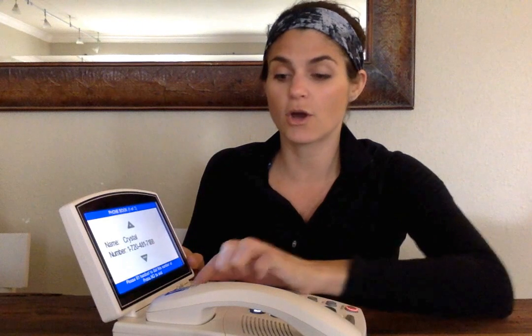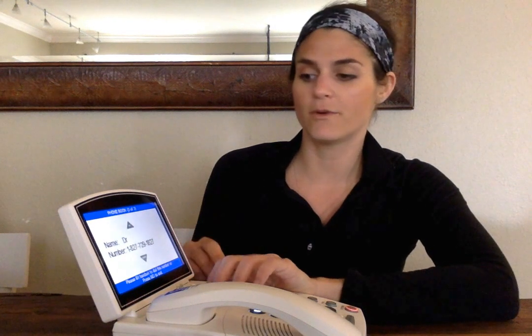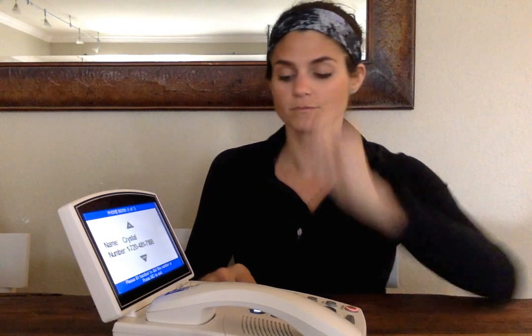Okay? And at this point, you're just going to go up or down to find the person that you want to call. So you can see it goes alphabetically. So I wrote doctor in there. You could call them or you could call me at Crystal. And all you would do is pick up the phone once you found the person you wanted to dial. So that's how the phone book works. That's how you add the numbers.